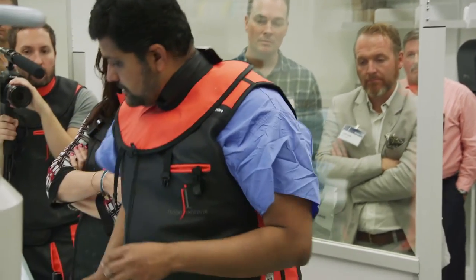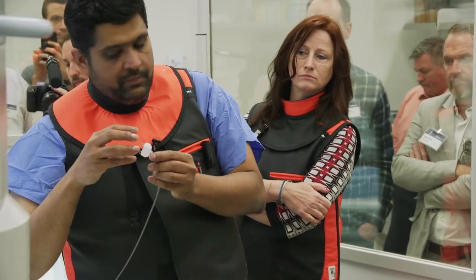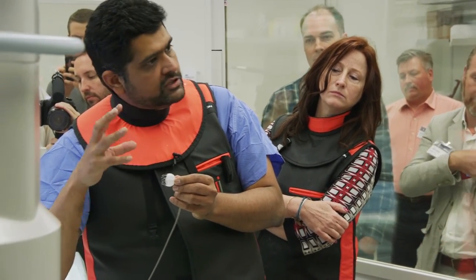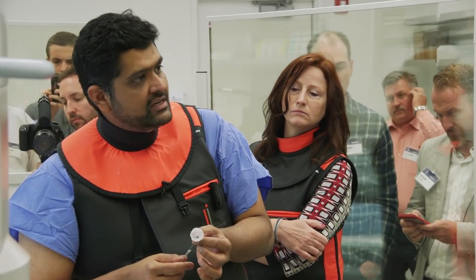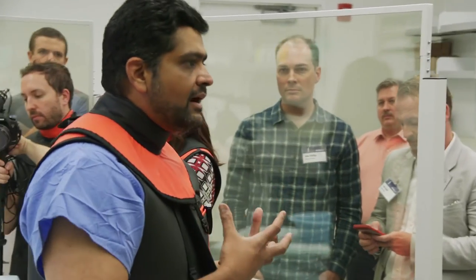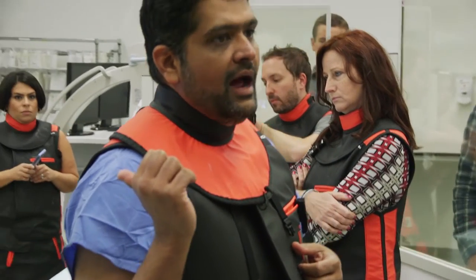Like the case I was describing — I thought by echocardiogram that a 33mm device would be just perfect. Tried the 33 twice, didn't quite work. There's a little tissue that's kind of pushing and grabbing onto it, and if you have over-compression near the feet — remember the heart is squeezing and ejecting it outwards — the device just came right out on the tug test. So we actually undersized to get better apposition without over-compression. We can do a lot of that planning in a model like this.